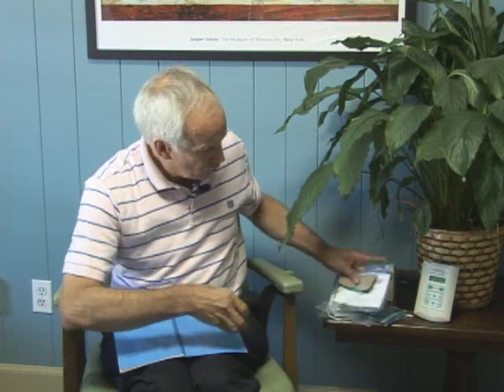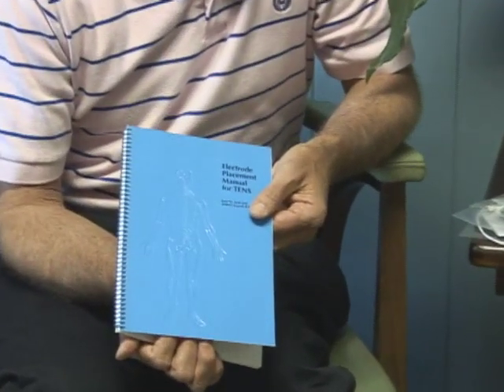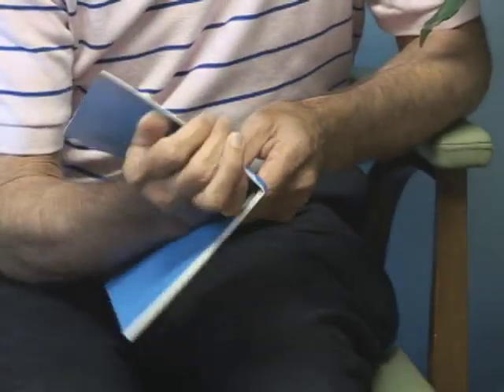Originally, way back in the 60s and 70s, everybody wanted a simple book on how to do it. This is a book that came from Medtronic — they quit making them years ago — but every time we'd buy a couple of 300 units, they'd give us 100 books.